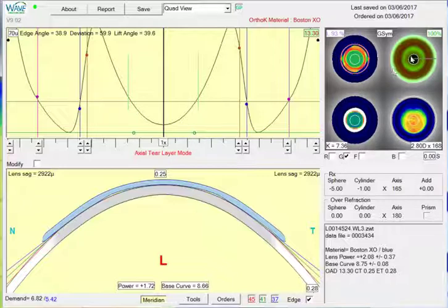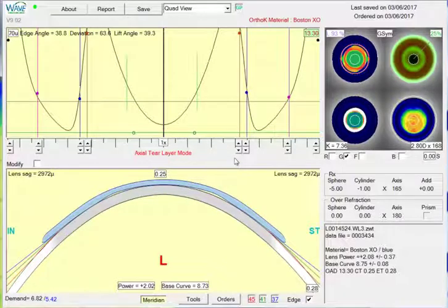I think I'm going to aim for about 175. So this one we'll do in 25% mode. And we're just going to adjust each of these a little bit.